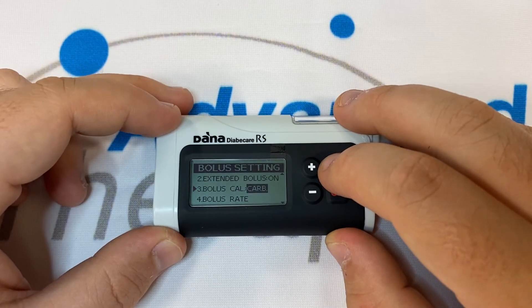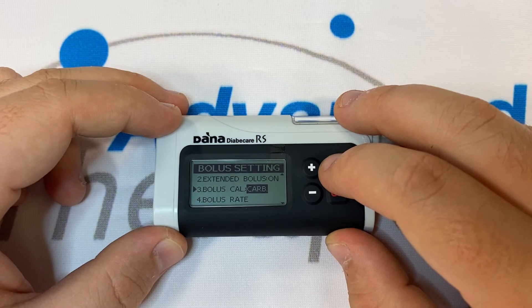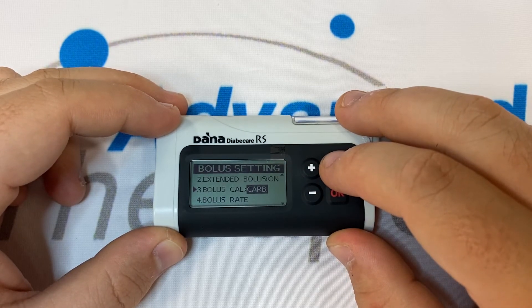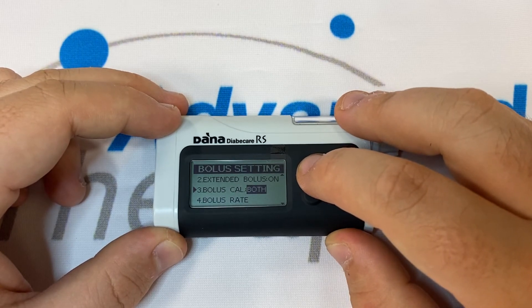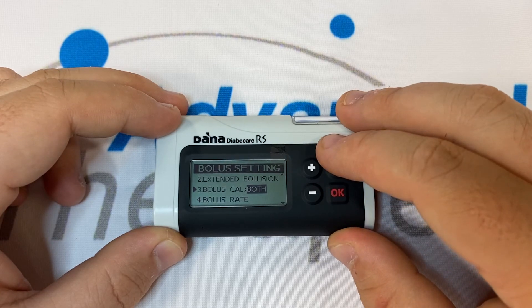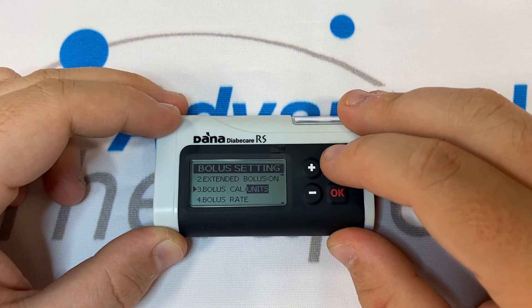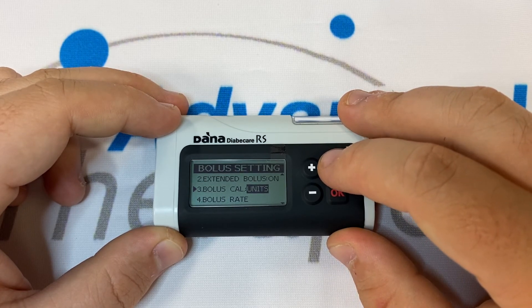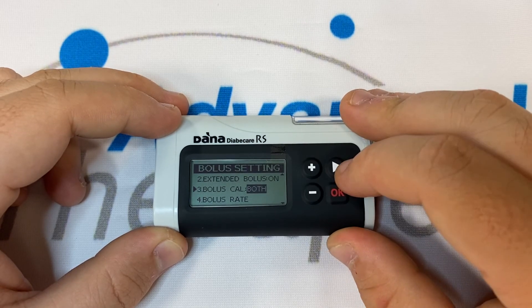Number three is bolus cal. We can have two different bolus calculators enabled in the pump. Carbohydrate will allow us to have a carb-only calculator. Both will enable us with the option between a carb-only and a manual bolus calculator. Units will remove the snack calculator and only allow for manual boluses. My recommendation is to set this to both.